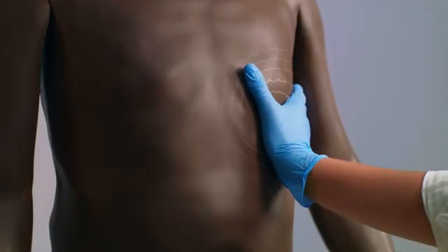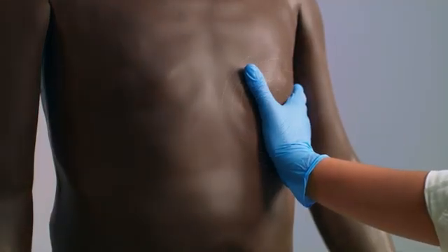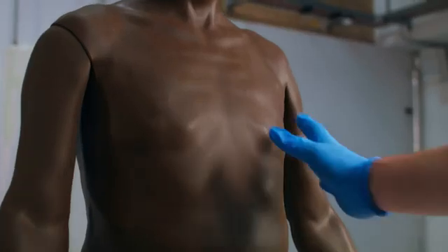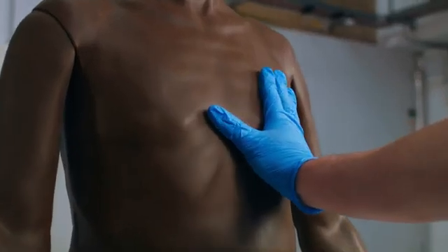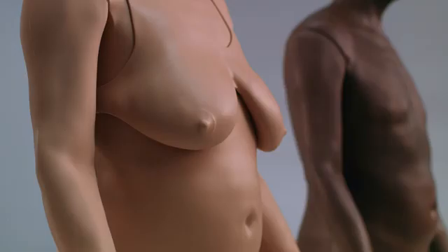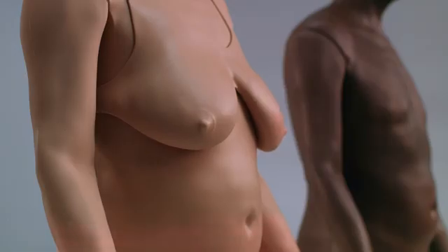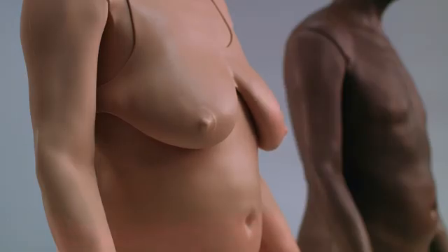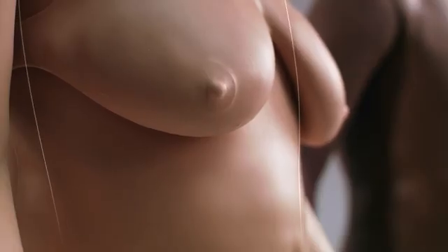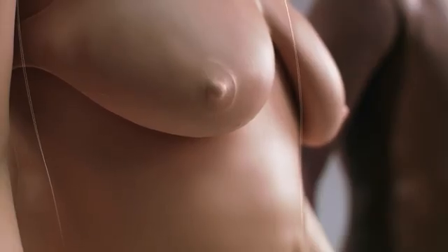CARE replicates key skills such as the realistic feeling of thrills over the four heart valves. A visible and palpable heave and lifelike chest rise and fall can be altered to different breathing rates and patterns, teaching skills needed to identify respiratory rate and abnormal breathing.